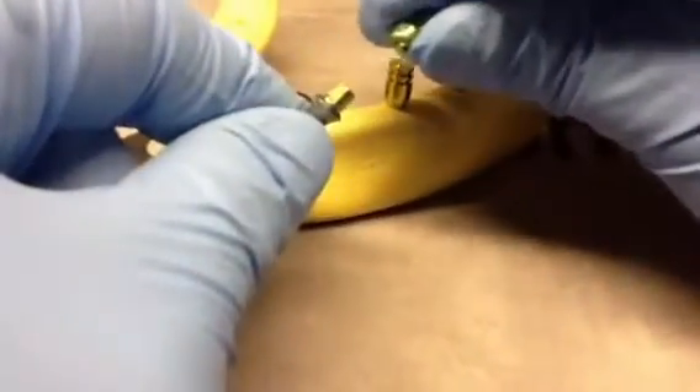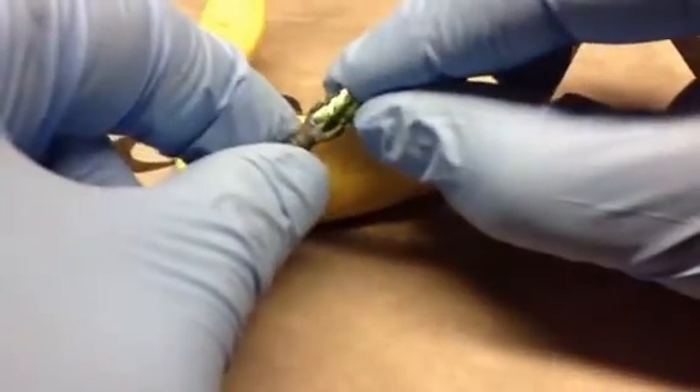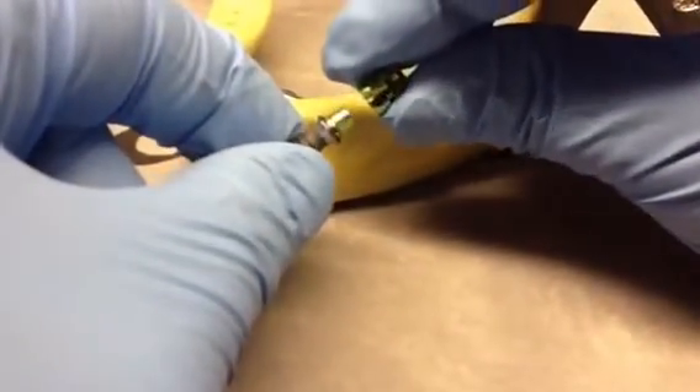In order to snap onto the shoulder of the implant, you can see it's a nice transition between the coping and the implant. There's a flat side on the coping to indicate where the flat portion is for the abutment.